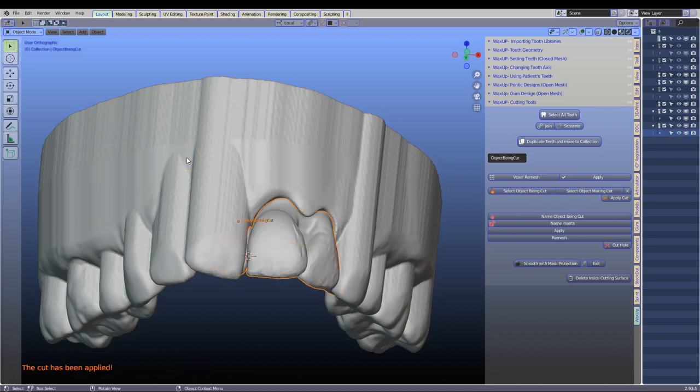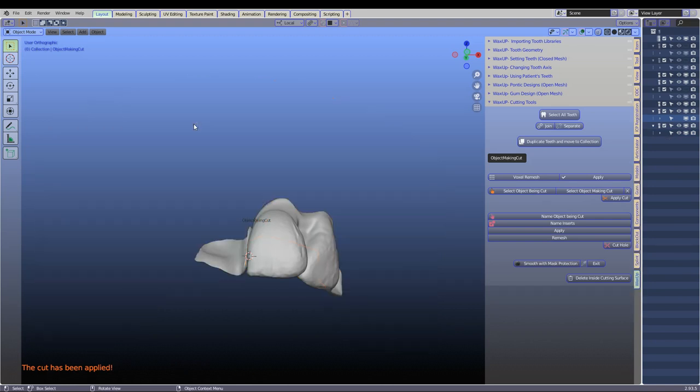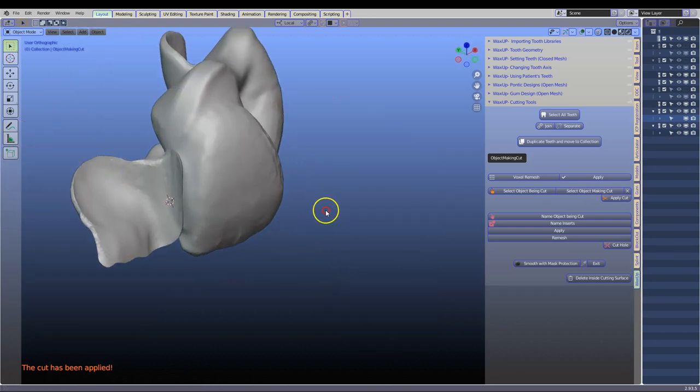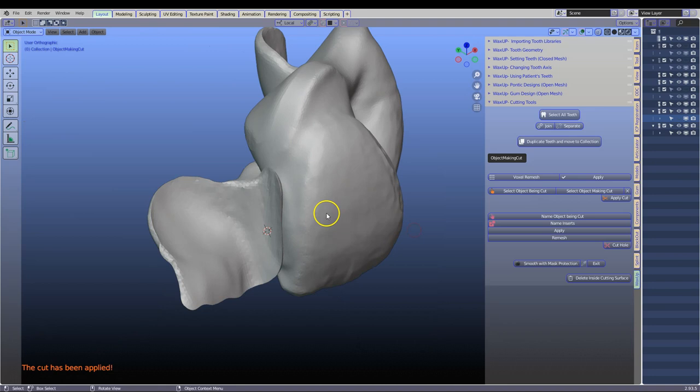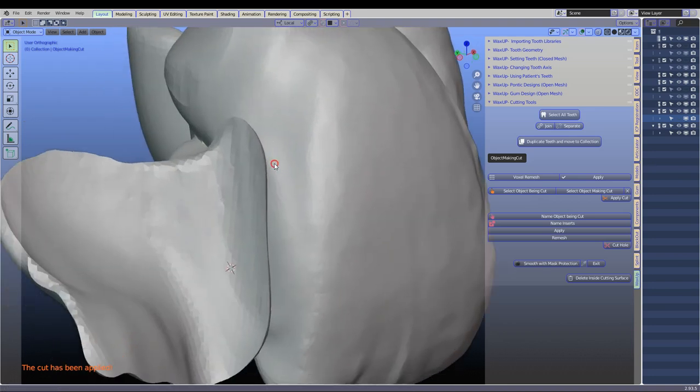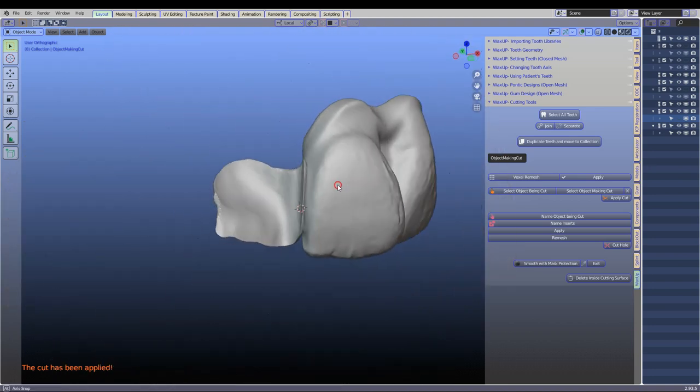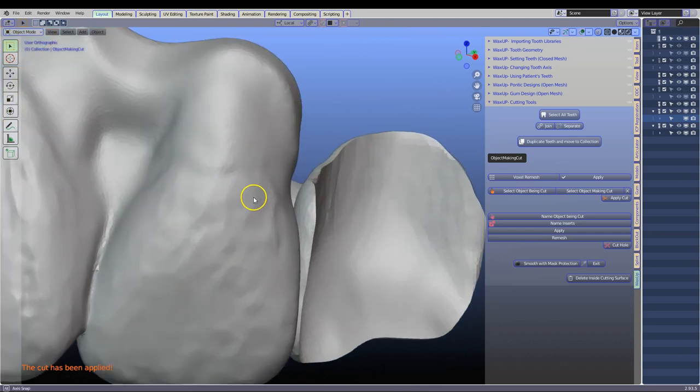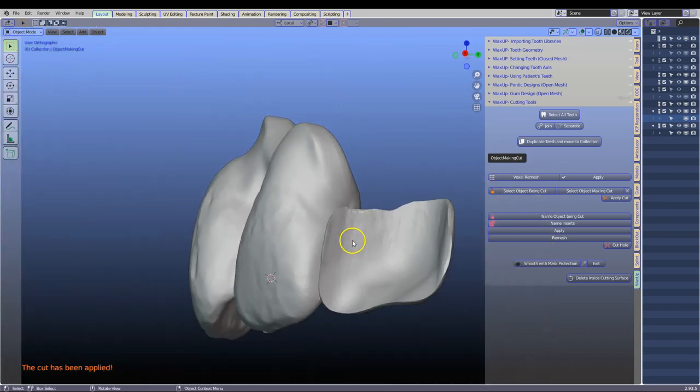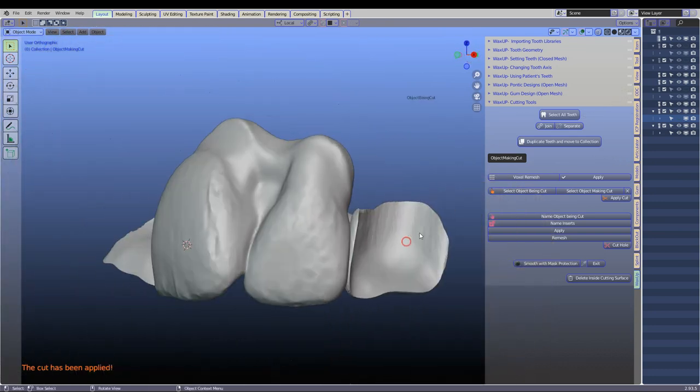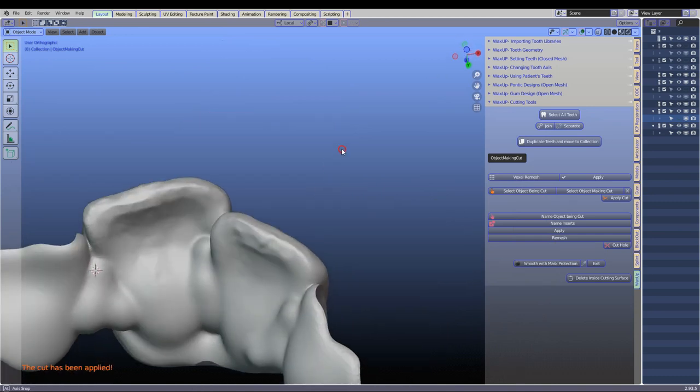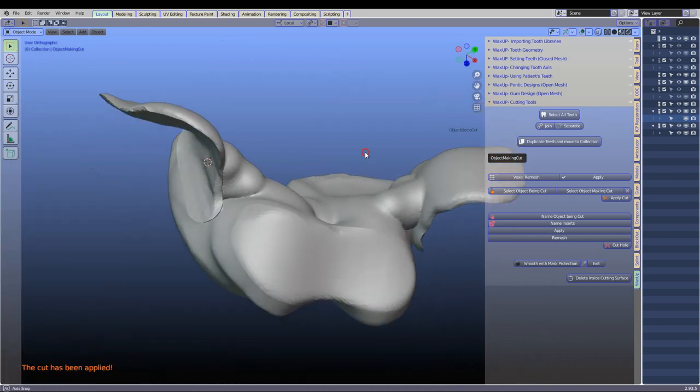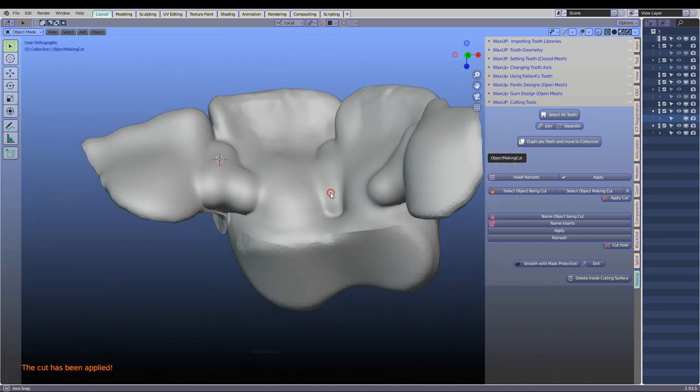Let's have a look at the finished product. So H to hide. And this is what it then looks like. You can actually distinctly see where it's been blocked out. And on the other side as well it's been blocked out over here. And that's our Maryland bridge.